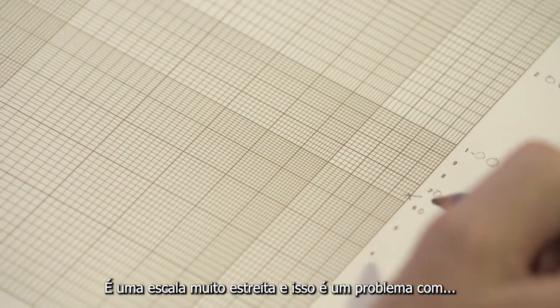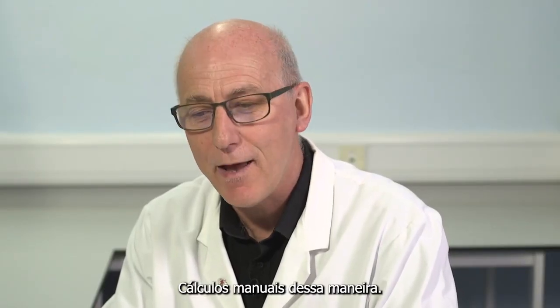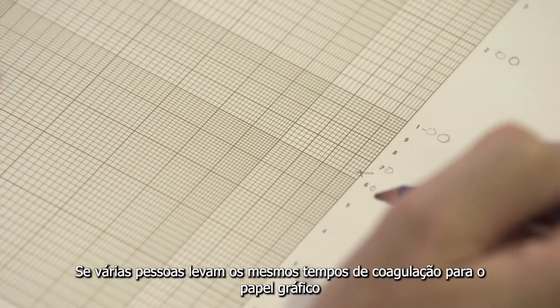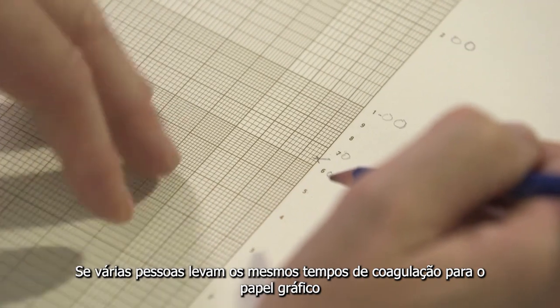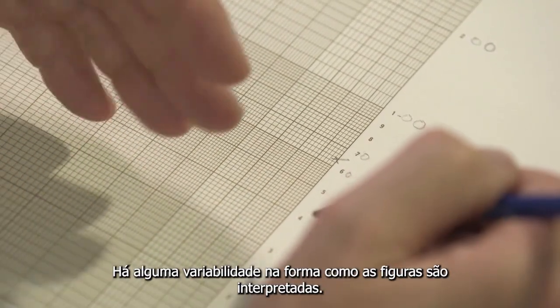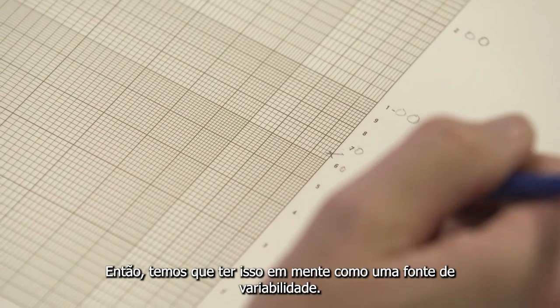It's a very narrow scale, and this is a problem with manual calculations in this way. We can introduce some variability. If several people take the same clotting times to the graph paper, there is some variability in the way the figures are interpreted. So we have to keep that in mind as a source of variability.